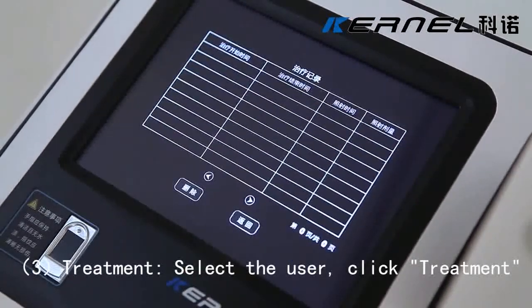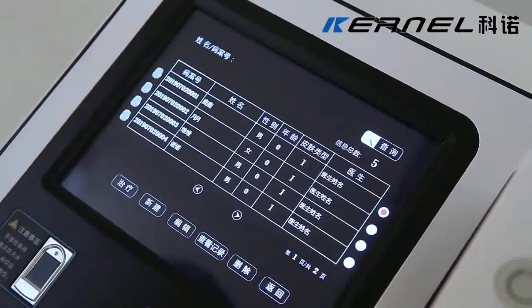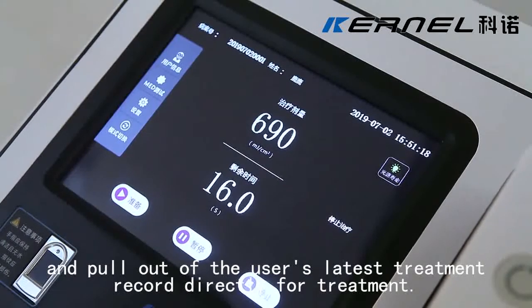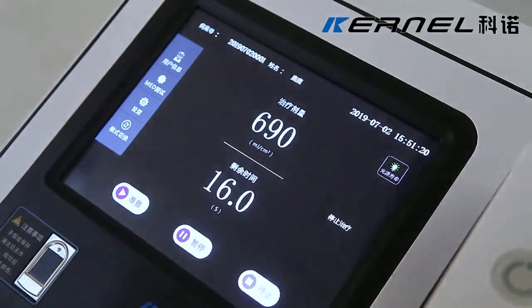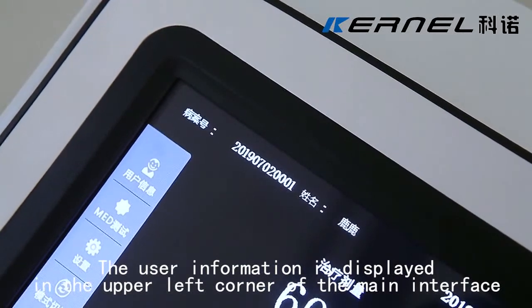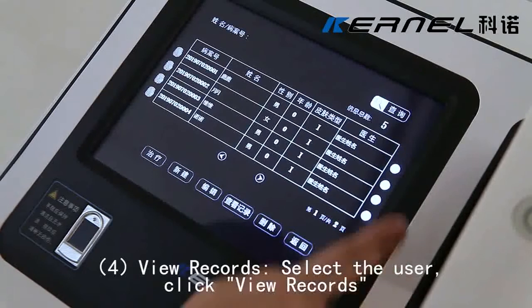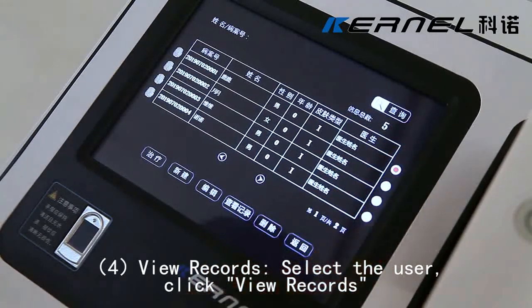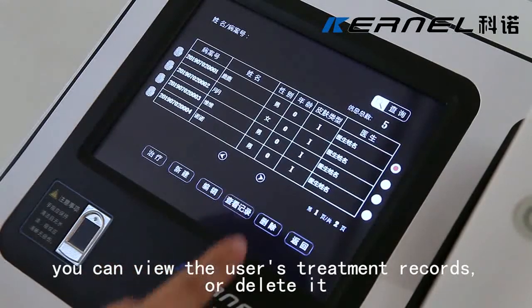Treatment: Select the user, click Treatment, and pull up the user's latest treatment record for direct treatment. The user information is displayed in the upper left corner of the main interface. View Records: Select the user and click View Records to see the user's treatment records.